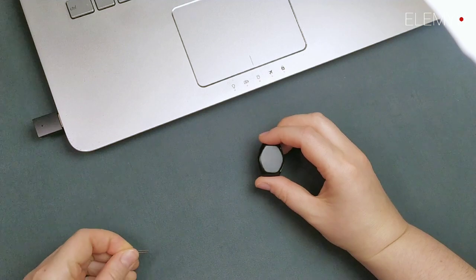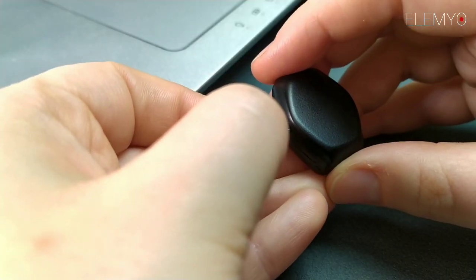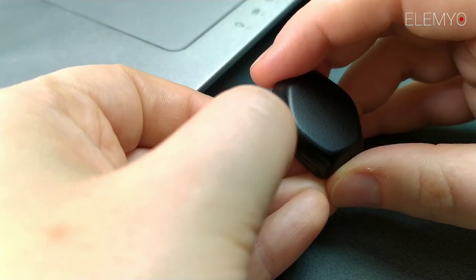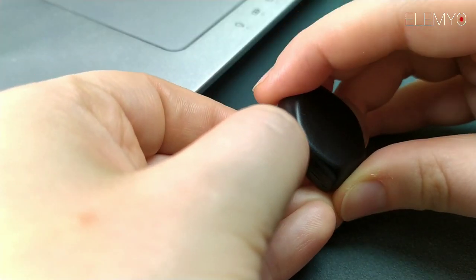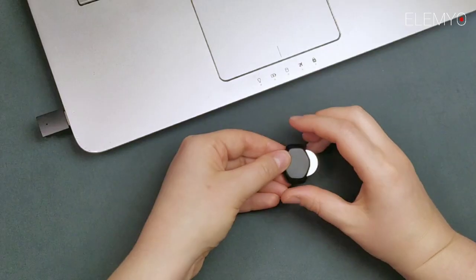After operating with the sensor, remove the battery. You can take it out through the side hole using the metal stick included in the set with the sensor.